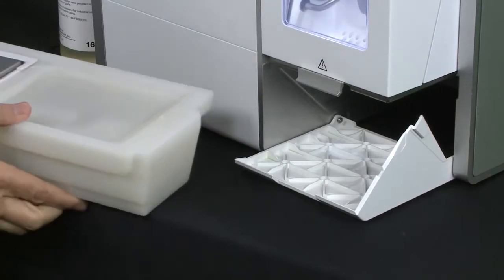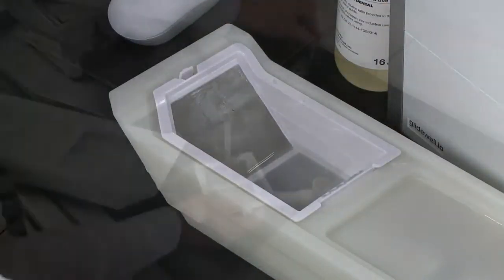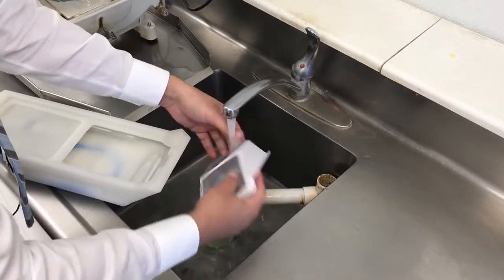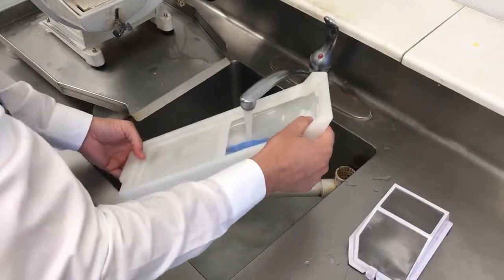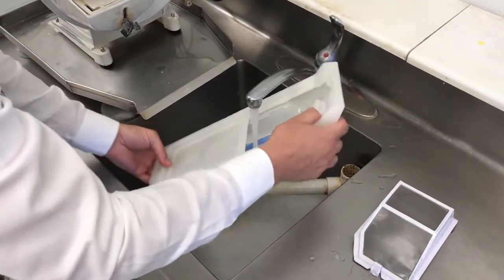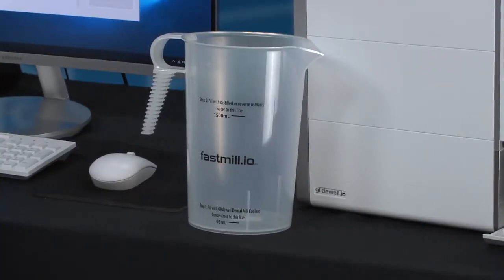Once the trough is out of the mill, remove the stainless steel splash guard. Clean all debris from the top filter, trough, and inner filter with tap water. A word of caution, do not unplug the internal filter when you remove the trough. Remove and rinse the main filter without unplugging the inner filter. A good practice to ensure efficient milling is to clean out coolant debris after every 10th job or once a week. Next, mix a batch of coolant in the pitcher provided with your chairside system.